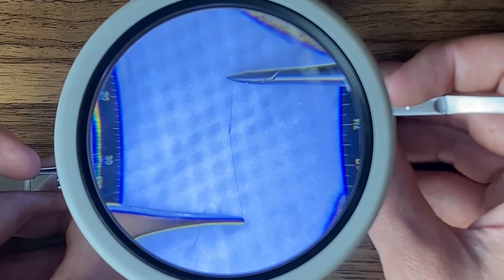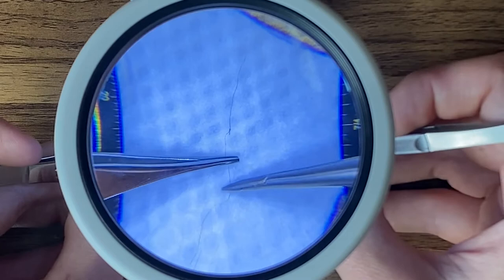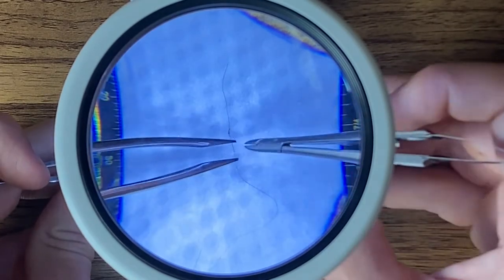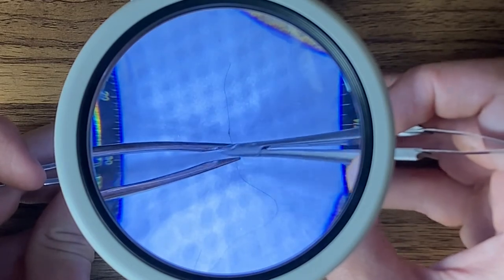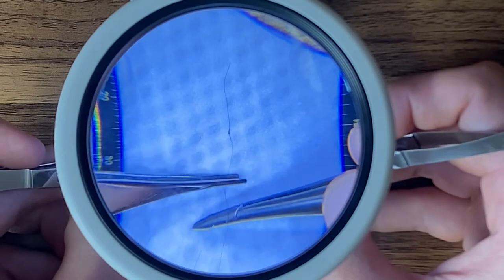So in this way, as I'm cinching it down, let me choke up so you can see it. As I'm cinching it down, it's shooting straight out of the jaws, straight up and down out of the jaws, not being subjected to this relatively dull blade here that is the 90-degree edge of the forcep.